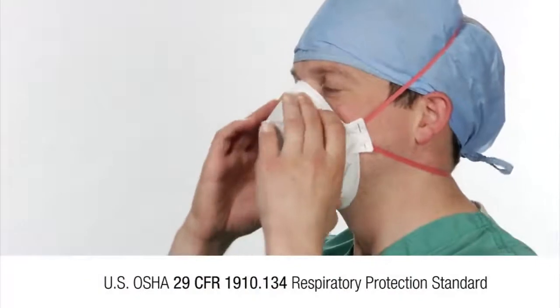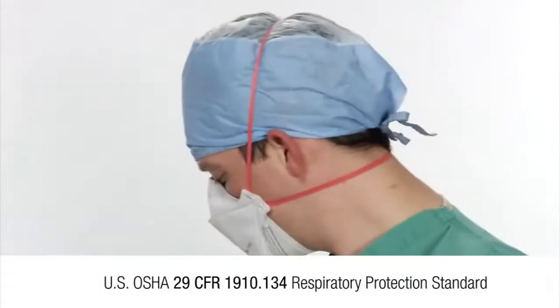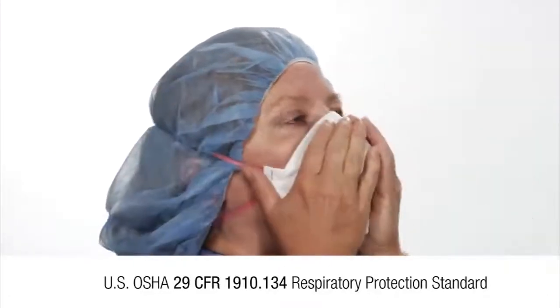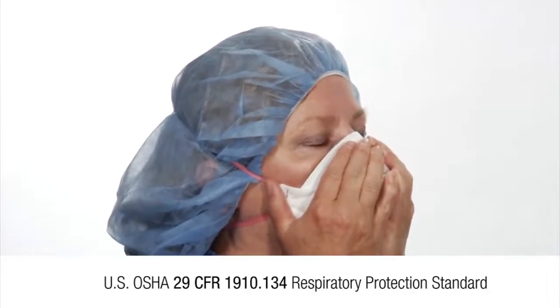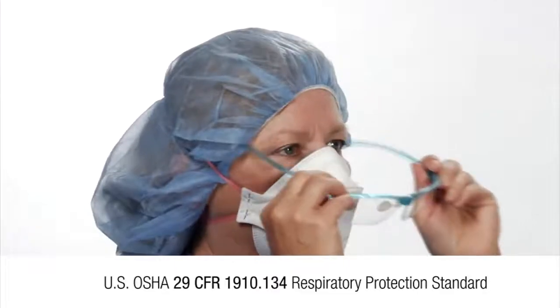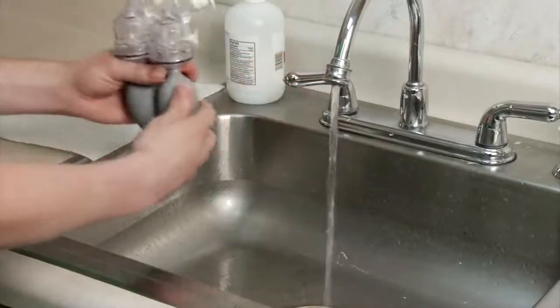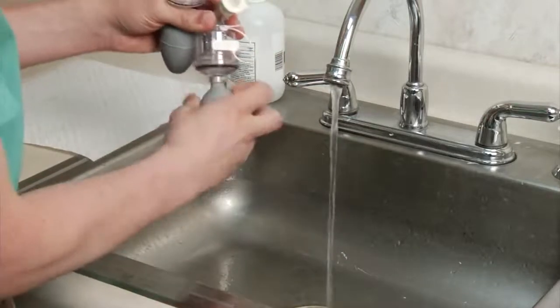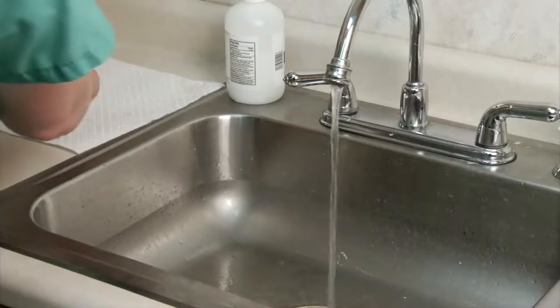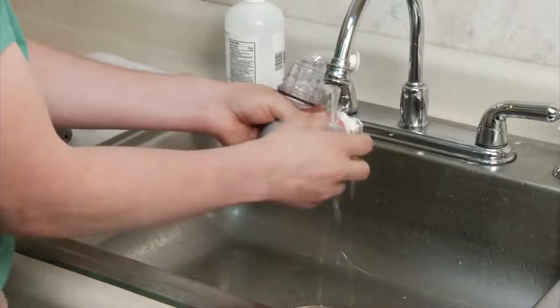Although not illustrated during this training, according to the U.S. OSHA Respiratory Protection Standard, fit testing must be performed while the test subject is wearing any applicable safety equipment that may be worn during actual respirator use which could interfere with respirator fit, such as hair bonnets and eyewear. After completing the qualitative fit test, the unused solutions in the nebulizers should be discarded. Immediately rinse the nebulizers with warm water to prevent clogging. After allowing the nebulizers to dry, store them in a clean and dry place.